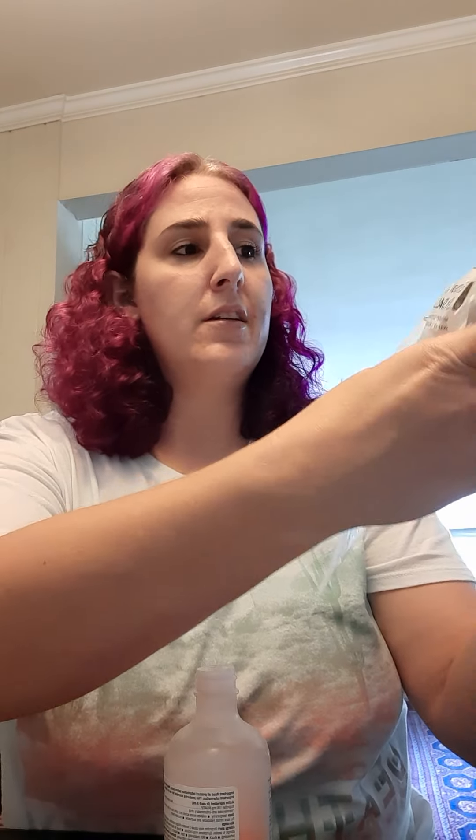All of the feedback applies regardless of what equipment we use. We use the Infinity Pump, occasionally the McKesson Enteral Gravity Bag, and I also modified old Kangaroo sets, which are Covidien. All of them have this same part that I'll show you.